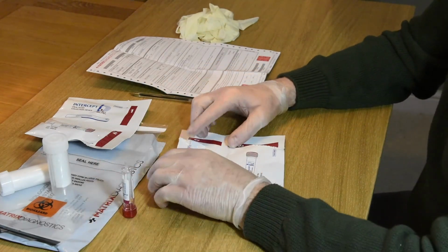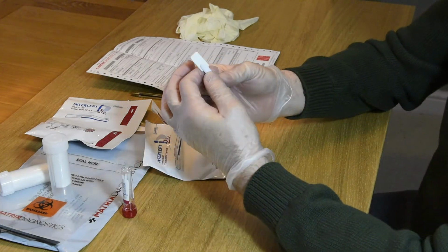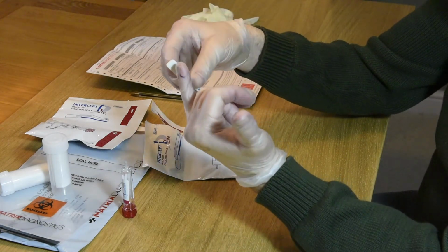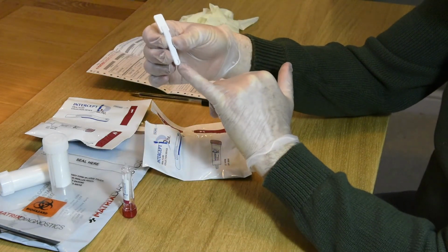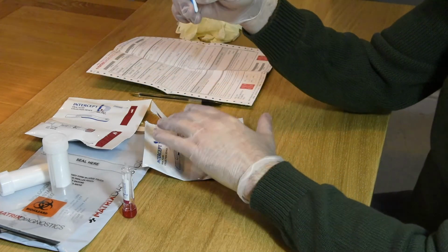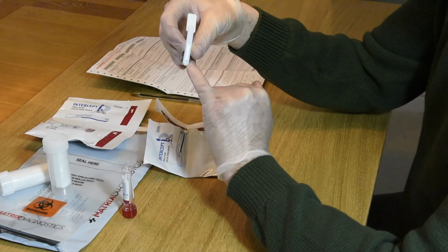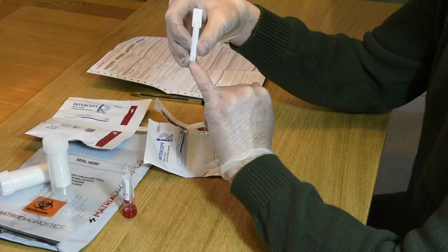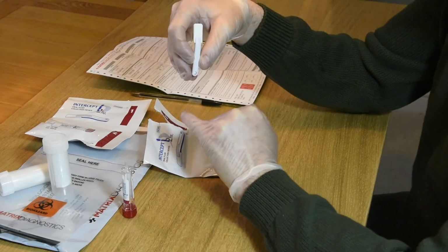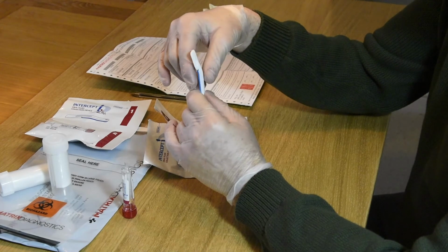We take out the collection device. And if I show you the collection device, it's just a little pad on the end of a stick. It's blue one side, white the other, with the pad extruding from the end. There's a little hole there, which is at the moment, if you look inside that little hole there, it's white. So I'm going to put this into my mouth. Generally within 2 to 3 minutes, we'll see a blue colour appear in the window, and that tells us that there's enough saliva on there, and we can now put this into the vial. So I'm going to put this in my mouth, and then I'm going to come back to you in a few moments once it's turned blue.